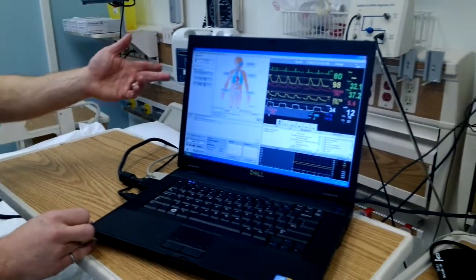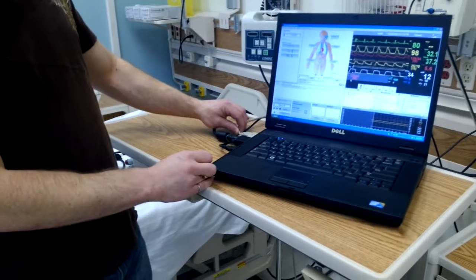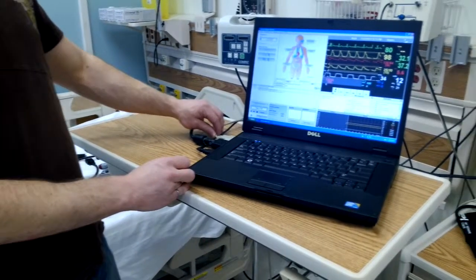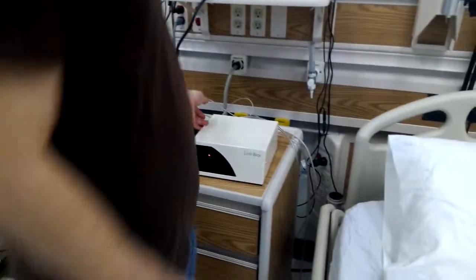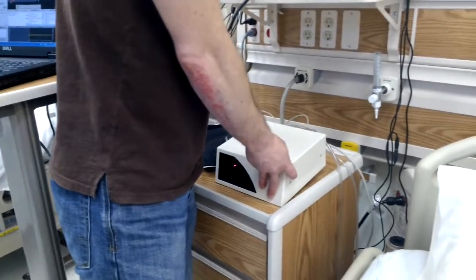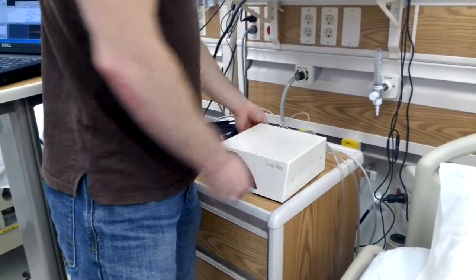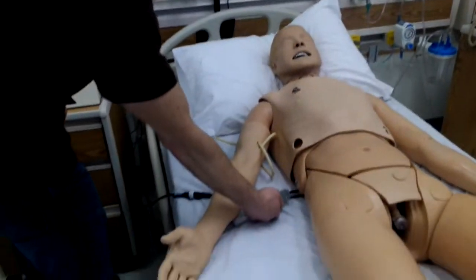Connection issues are likely due to this data cable at the side of the laptop not being plugged in, the same data cable on the back of the link box not being connected—the cable says PC on the back—or it might not be connected here at the mannequin itself.